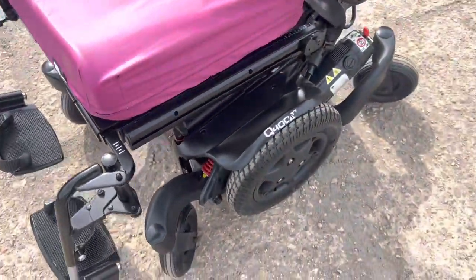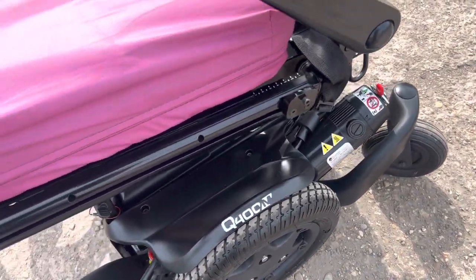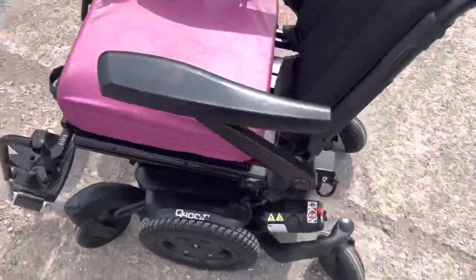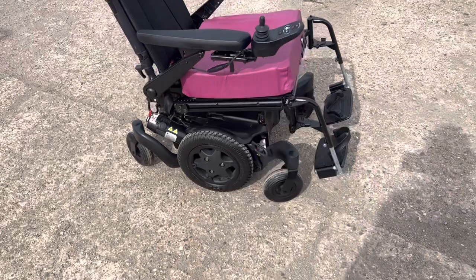We've not even had to clean this much — we do a really deep thorough cleaning process anyway, but this is just immaculate. We also have a shop opening soon in Leicestershire, where chairs like this will be available to view in store.